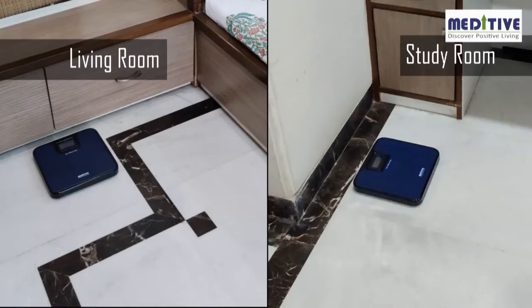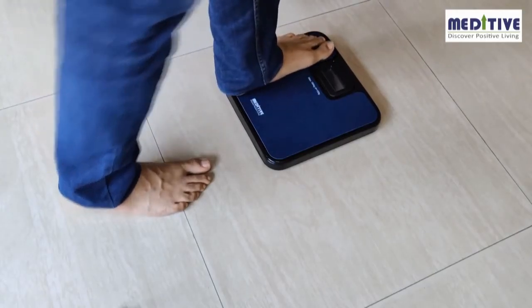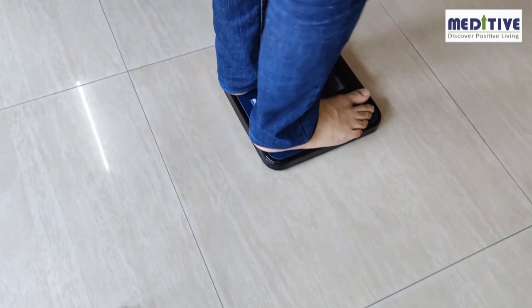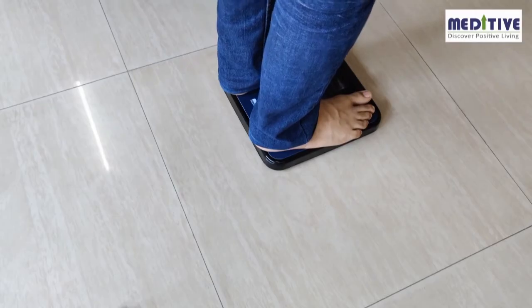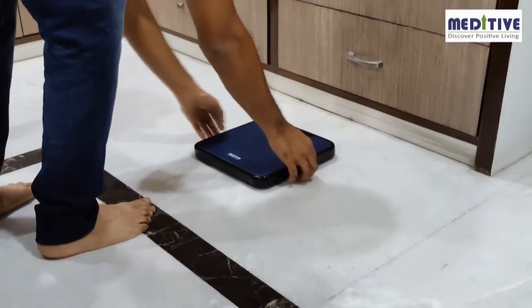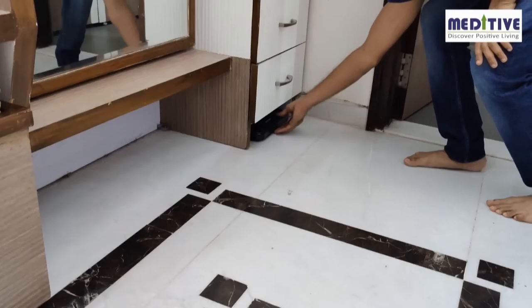Keeping it on the floor will motivate you to track your weight more regularly. It is recommended that you always take your weight at the same time of day and without shoes. A difference of 100 to 200 grams can appear because of these factors.